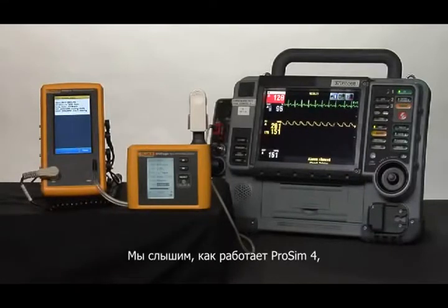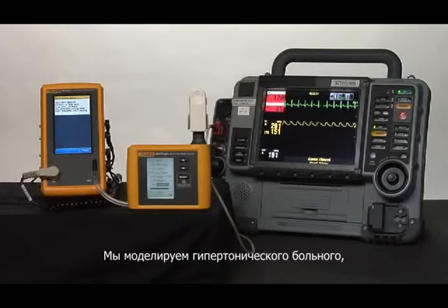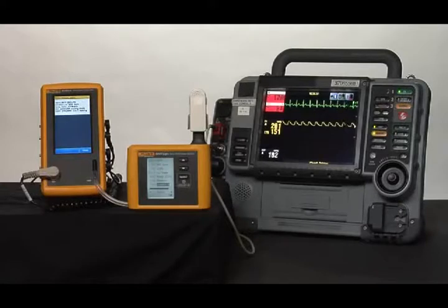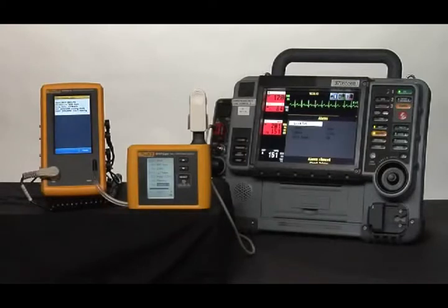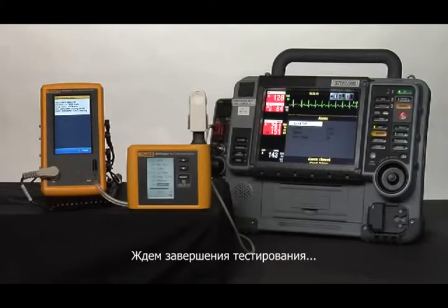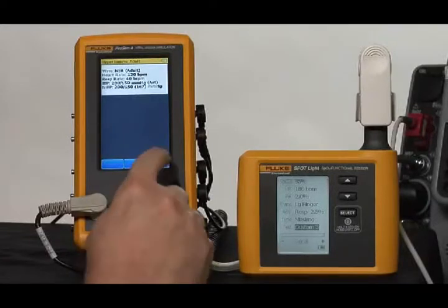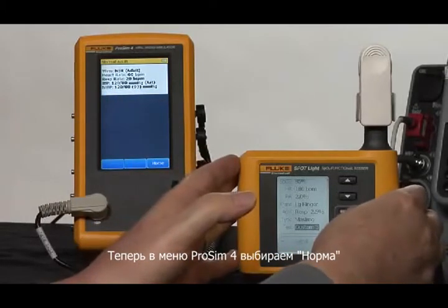You'll hear the music begin from ProSim 4 as it simulates the NIBP from the patient, will make the measurement. Because this is a hypertensive patient, it sets off the high limit alarms. That's normal. We can silence those while we're waiting for the rest of the values to settle in and the NIBP reading to finish. And there we go. We will now go back to ProSim 4 to a normal patient.